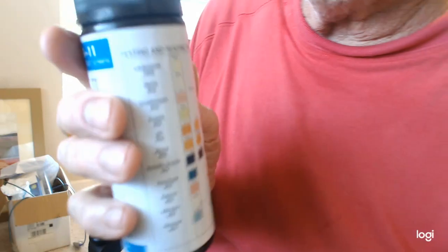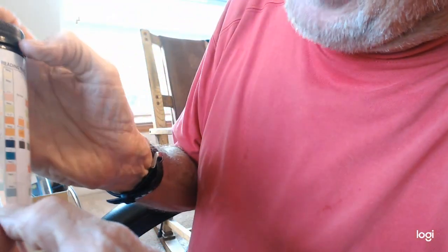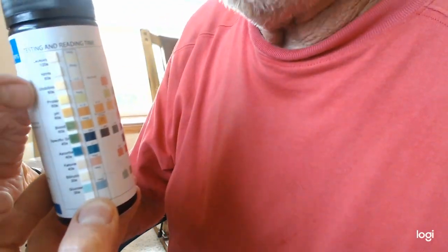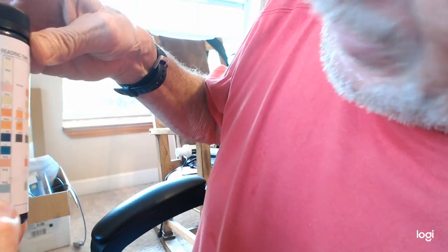Once again, we have our colors here, the colors that we're trying to compare to. It's refusing to focus again. But we're going to look down here, and I'm going to put this next to it. The colors are all matching up from top down to bottom until you get to this one. This one is supposed to be this kind of light pinkish orange, and look how dark green it is. That one is the blood one. If I move it across here, I'm going to find that it's about here.